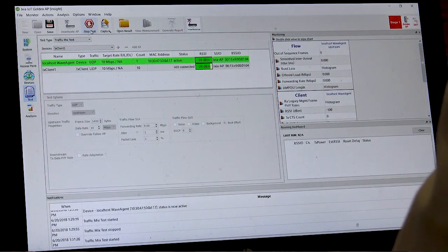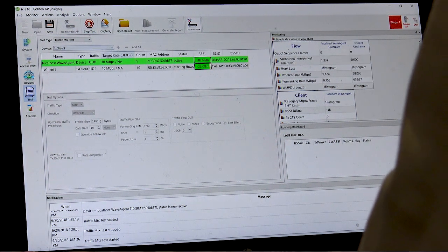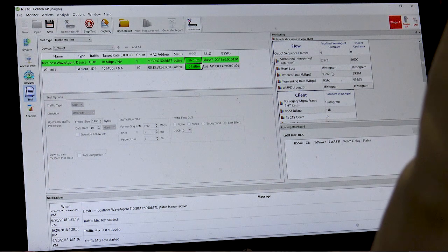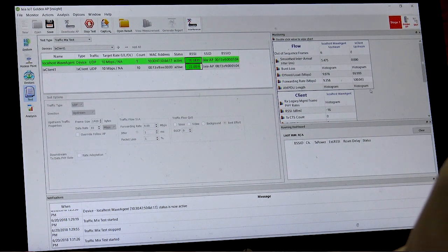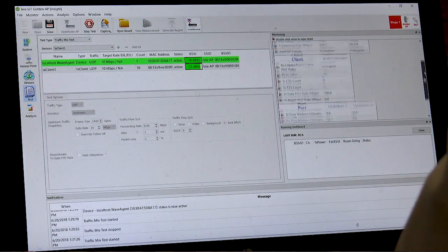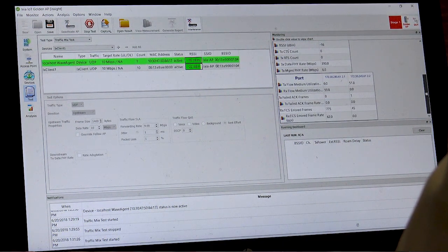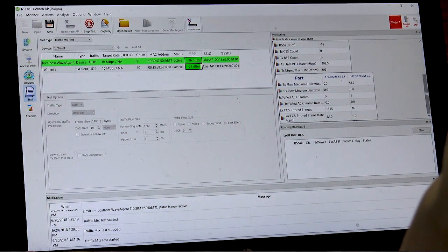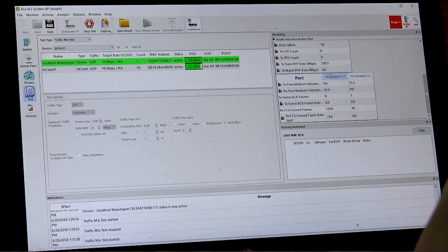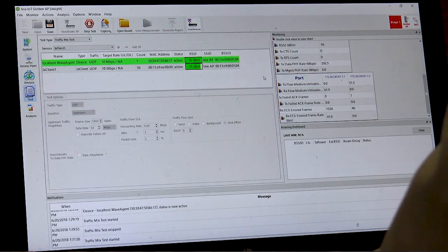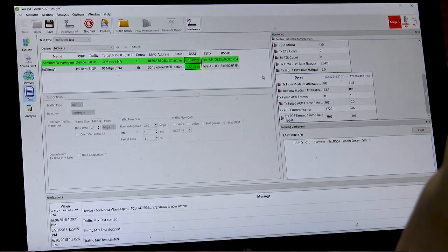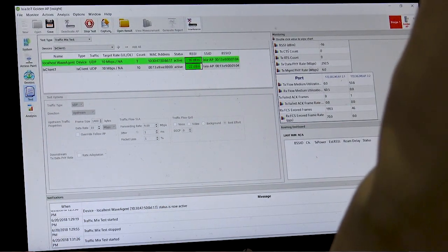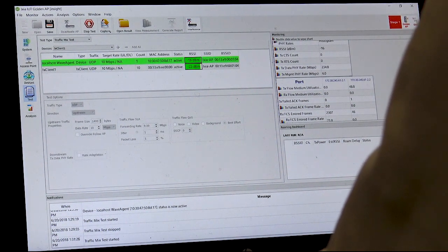We'll start the test and we're able to see statistics for the medical device as well as the other devices that are connected to the simulated access point. We collect information for how your medical device performs in the different environment. We can also add on different levels of interference or other types of scenarios, such as range or different situations where your medical device might be in a complex situation.